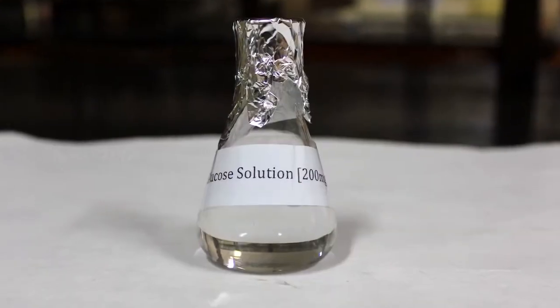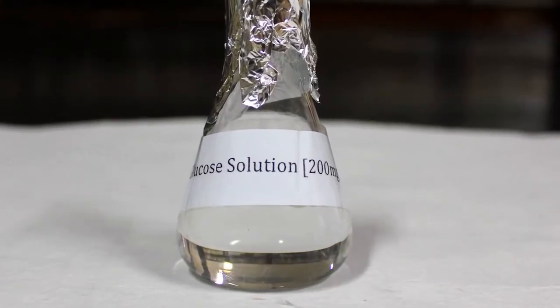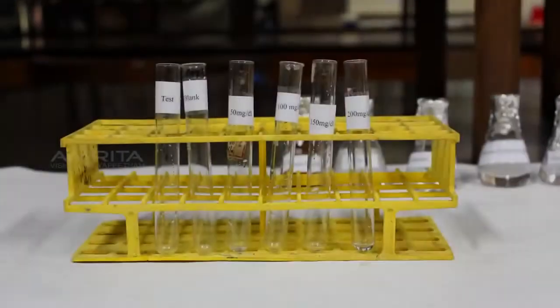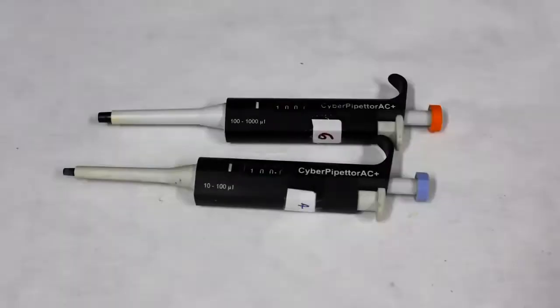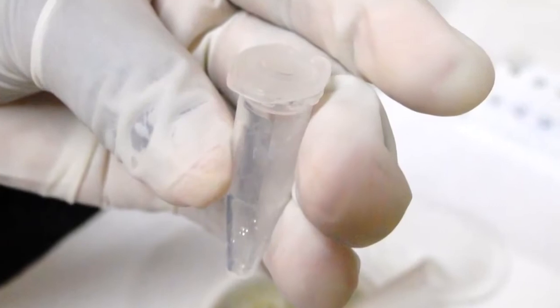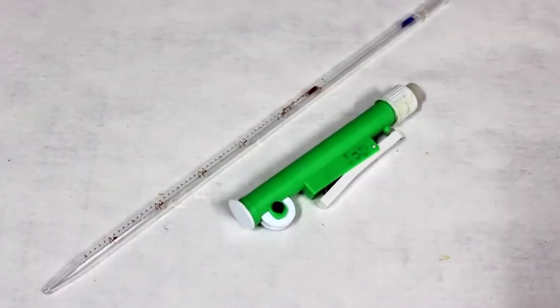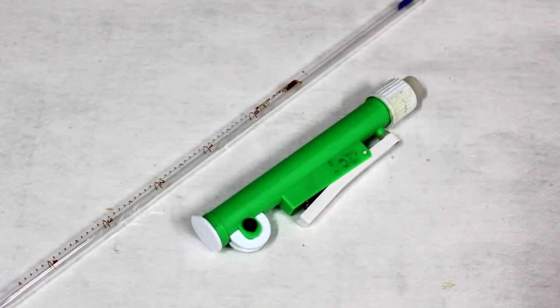200 mg standard glucose solution, distilled water, test tubes, micro pipettes, Eppendorf tube, 5 ml glass pipette, and pipette pump.